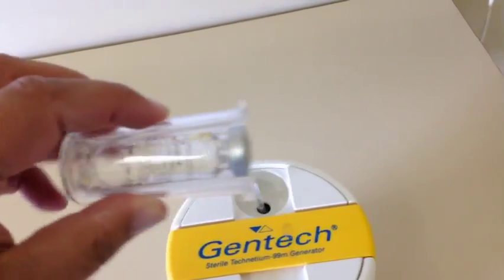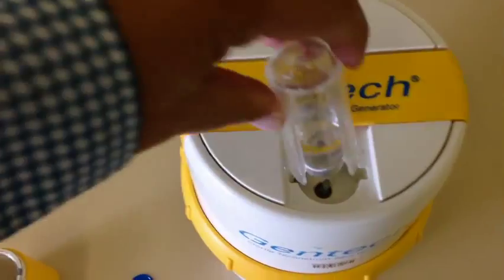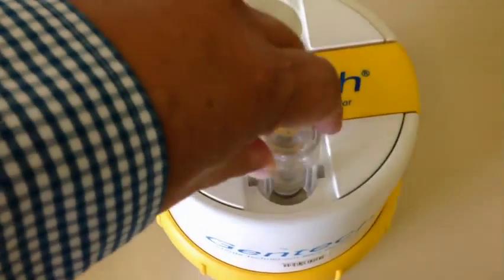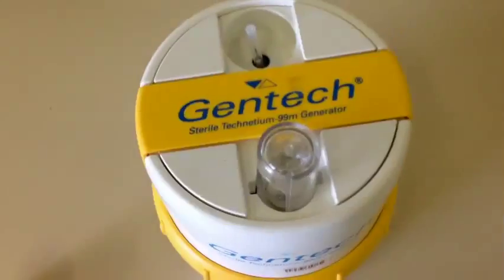So it's a little housing that's designed to hold the vial. And you can see on the top, there's a couple of teeth that correspond to the teeth here. And so you would just pop that down, turn it to lock it.